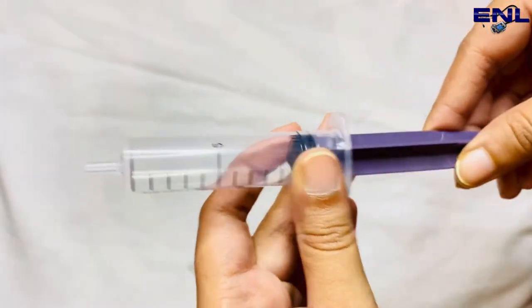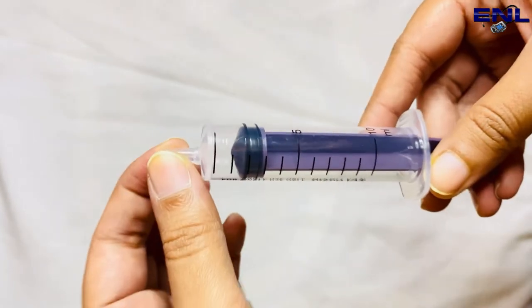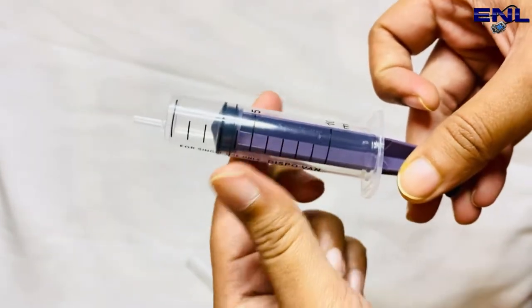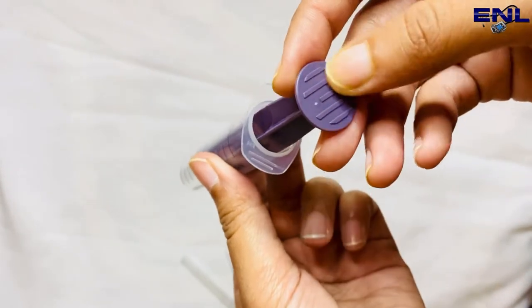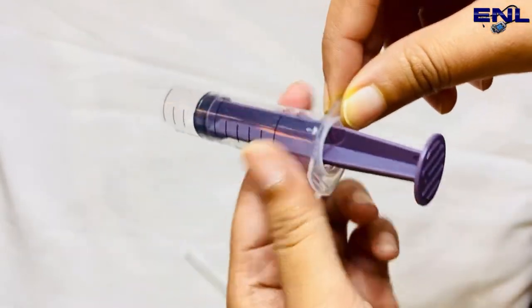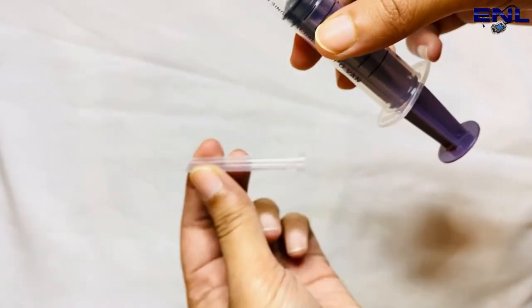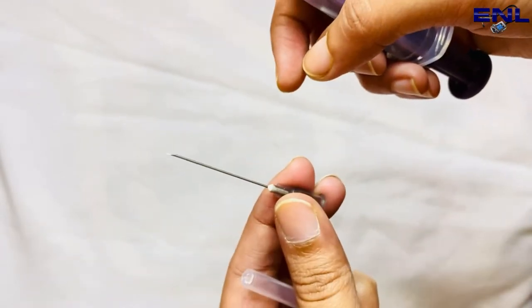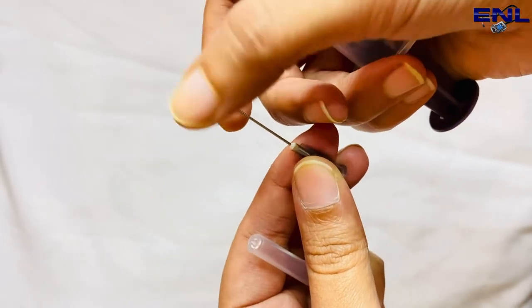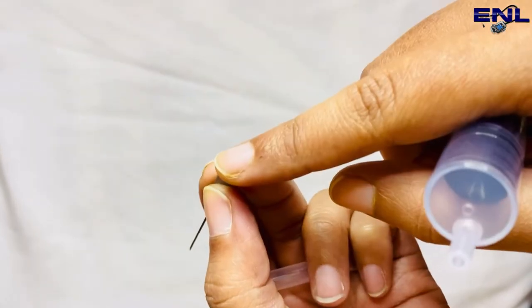That is simply the parts of the syringe. Let's revise: this is lure lock, this is barrel, this is plunger, we have flat end, and here we have the top collars. These are the calibration marks. This is the needle cap, and this is the needle. This is the bevel area, needle shaft, hub, and opening of the hub.